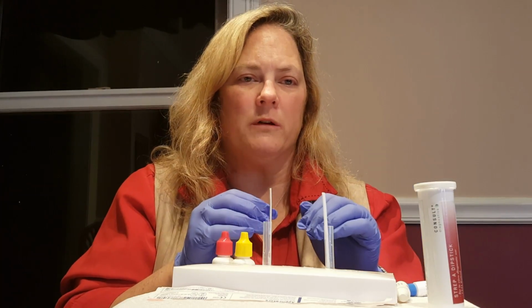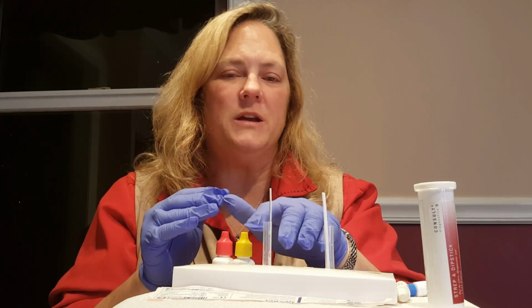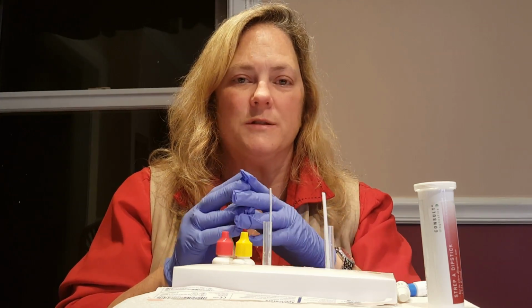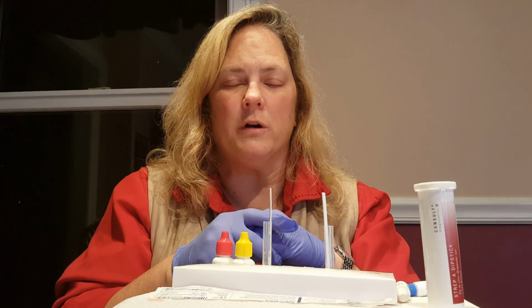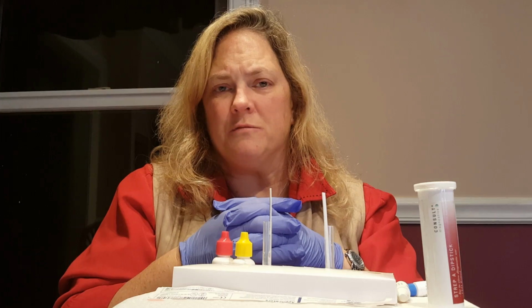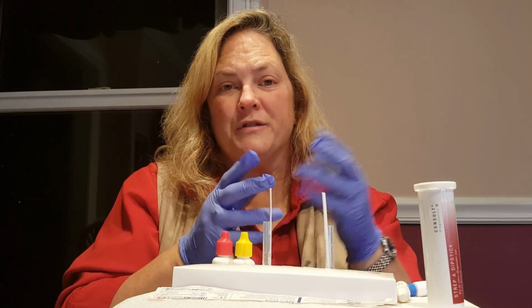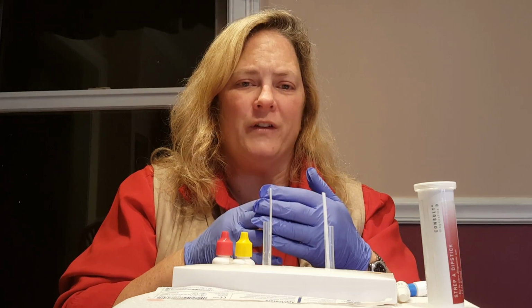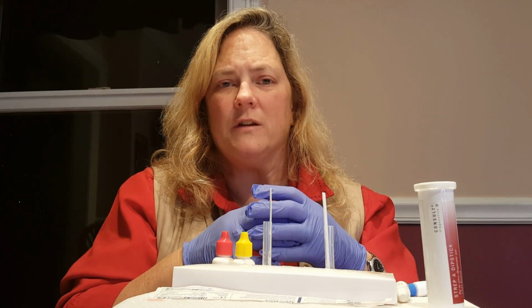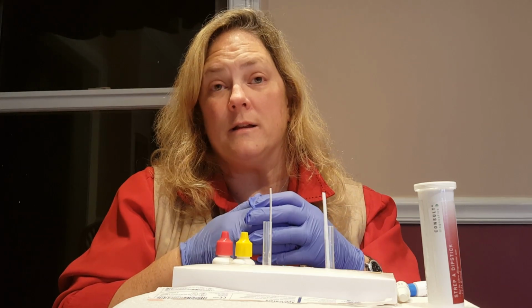These results will all be recorded in the quality control log for the quality control test, and then the patient testing log for the patient test results. And then it will then be recorded in the patient's electronic health record. And then the results of the test should be shared with the provider so they can base their care. In some scenarios, if the test is negative and the provider feels strongly that the patient is suspicious for having strep, they may send the culture swab to the lab for further analysis.